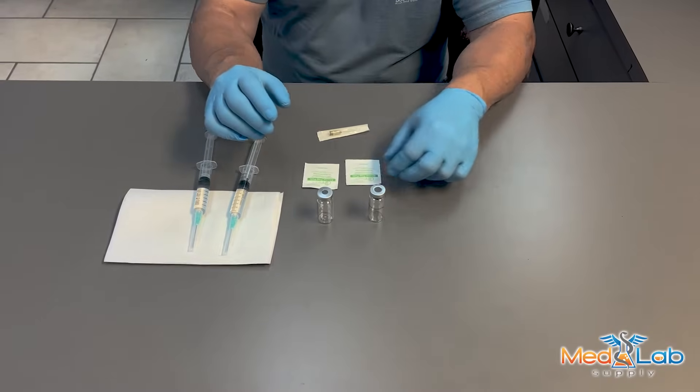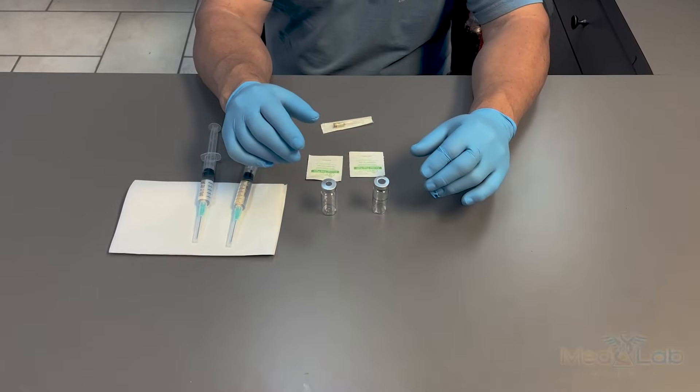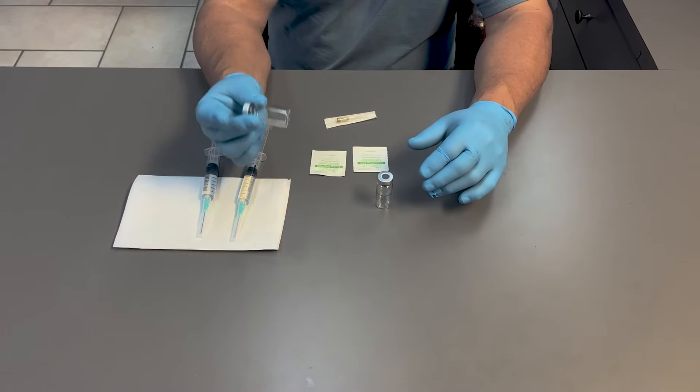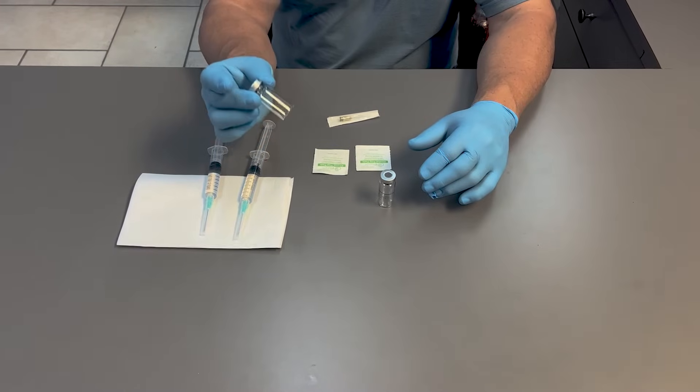Here at MedLab Supply, we carry a couple of different types of sterile sealed vials. One is a standard sealed vial, which means the air pressure inside of it is neutral.